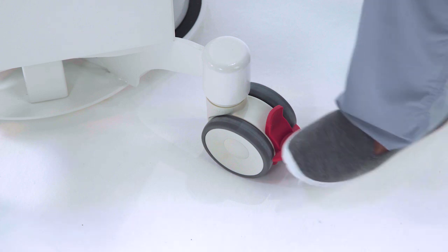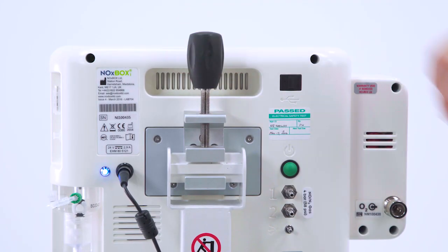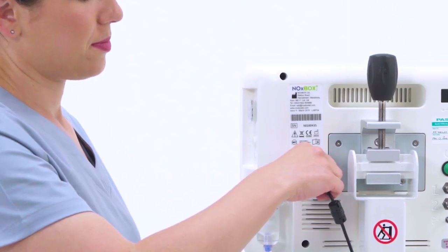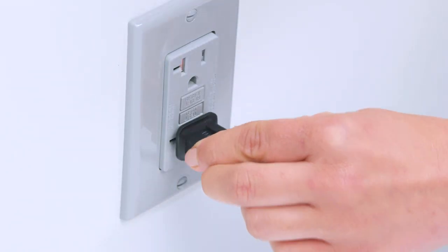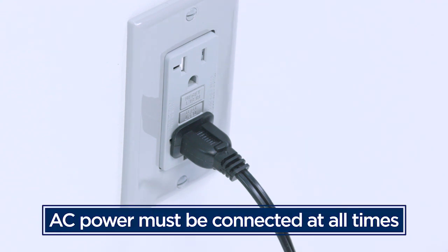Ensure that the wheels are locked during setup and while in use. Tighten the rail mount bracket to the cart to secure the device. Check that the monitor end of the power cord is plugged tightly into the power socket located at the rear of the monitor. It should be pushed in until the locking mechanism clicks. Connect the AC cord of the power supply to a hospital-grade electrical outlet. The AC power must be connected at all times, especially when in storage.